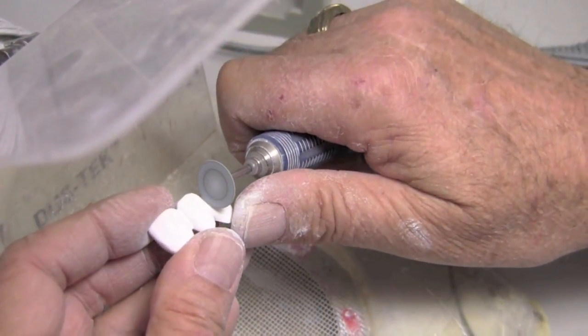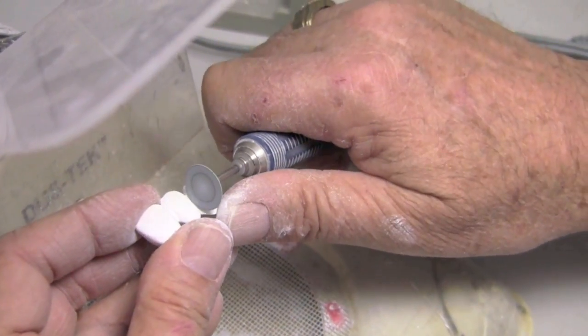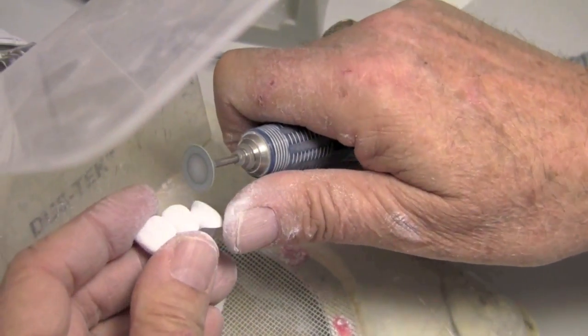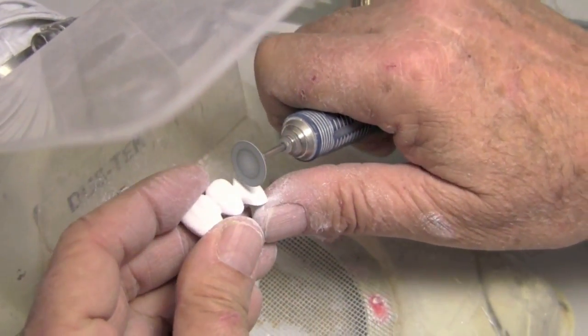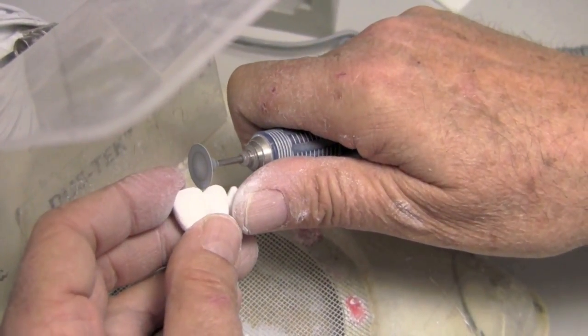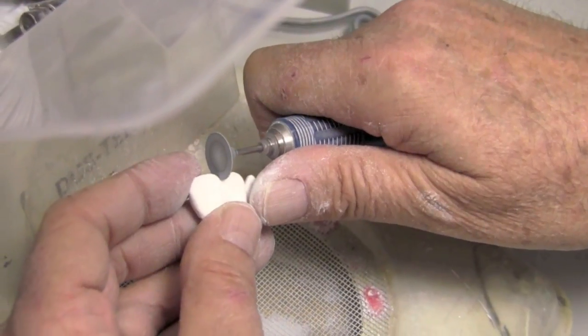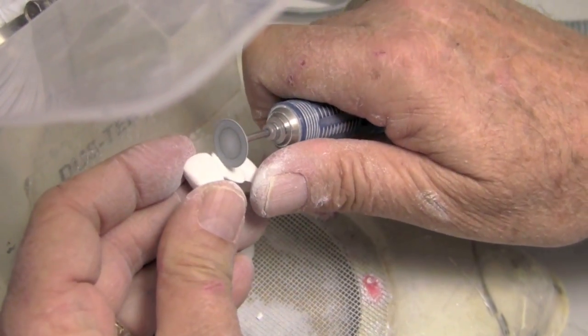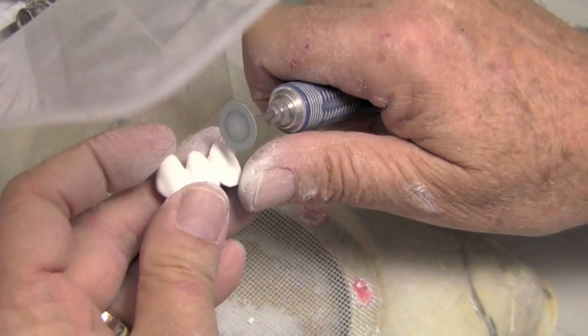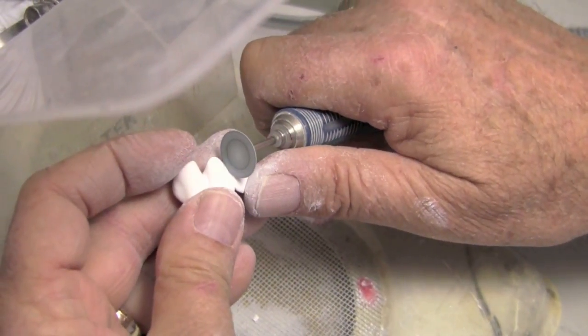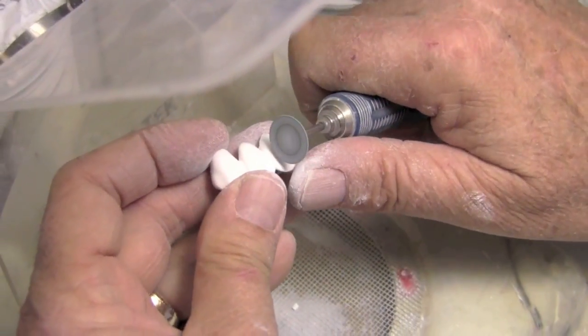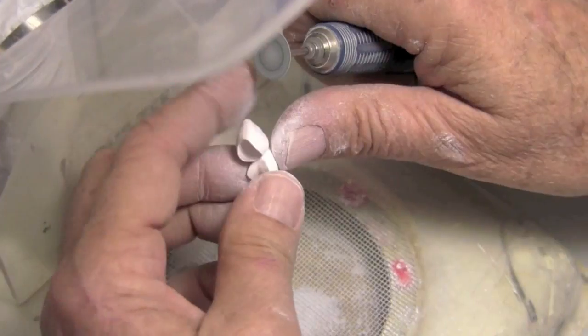Because the more we go, we're actually making a cleavage point, which you don't want. And that's why I don't like anything thinner than this. Because this still leaves a slightly rounded bottom to the groove. And up here, where our incisal edges meet, these incisal embrasures, we definitely want those sharp. And so let the contour kind of guide you. And just get these embrasures enhanced just enough so we start to look a little bit like separate teeth.